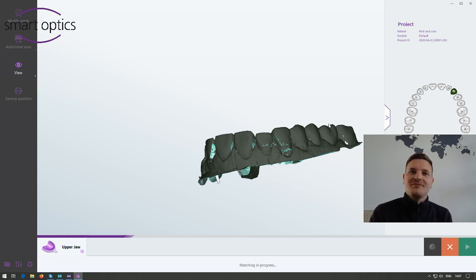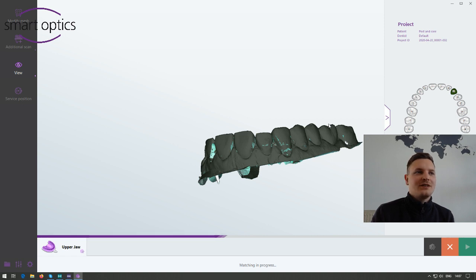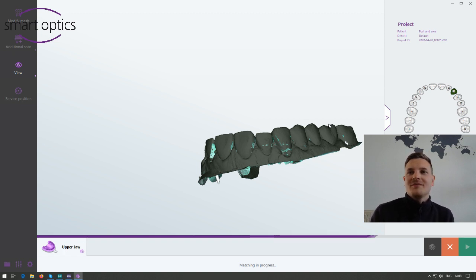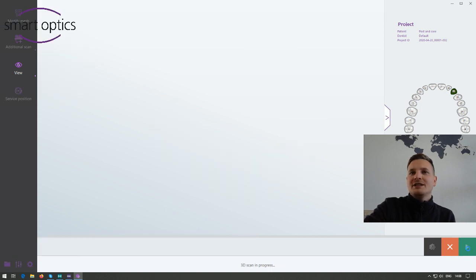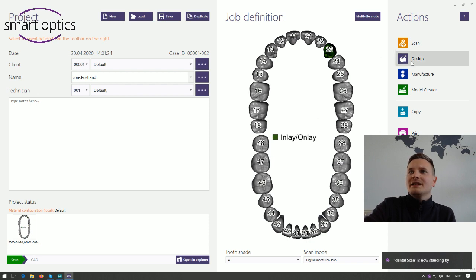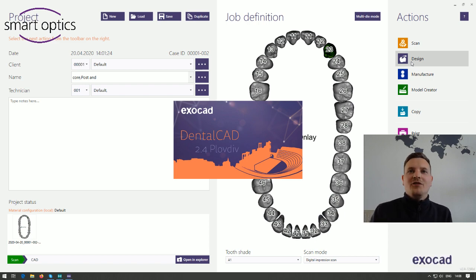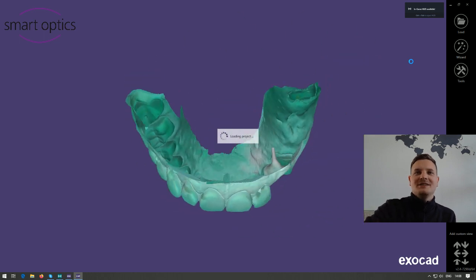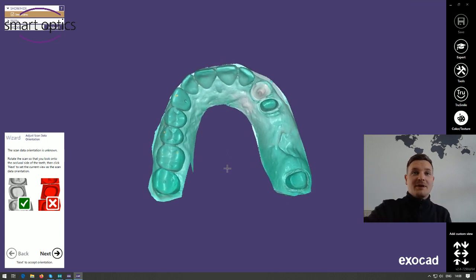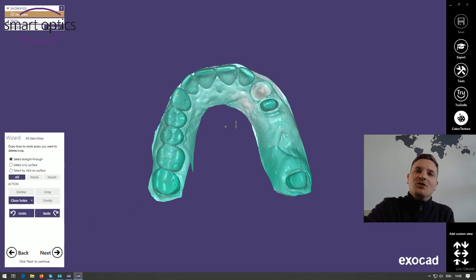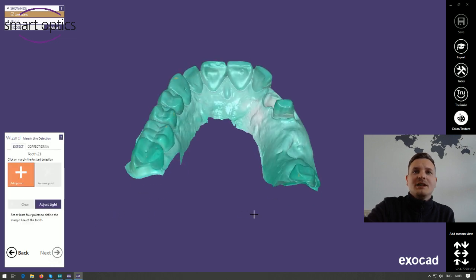Just a few seconds until the matching is done. Carsten is also in the stream and will try to answer all your questions. Now we have the STL file from our impression and I can finalize the project. I'm back in ExoCAD DB and can start the design — I changed the language to English. The first step when scanning impressions is to choose the right orientation: move the model to the upper side and say next. Then you're able to cut some areas, but everything looks fine so I go next again.